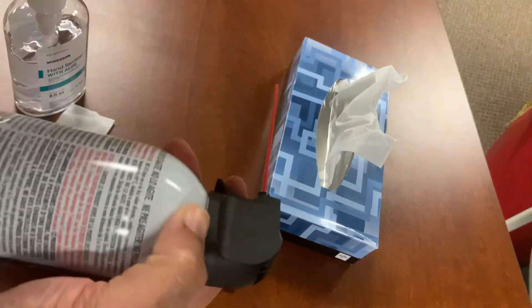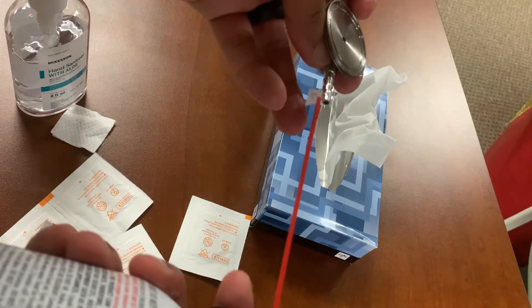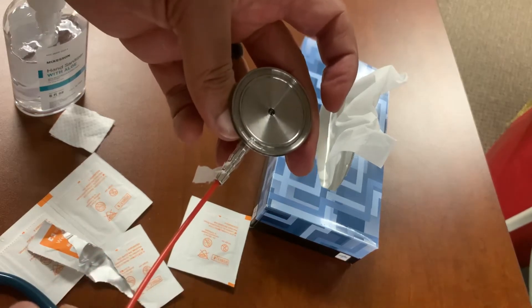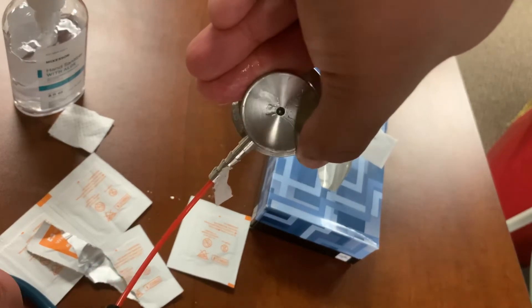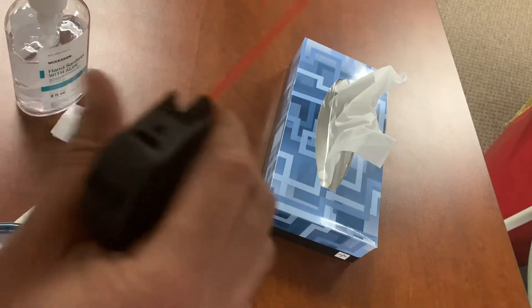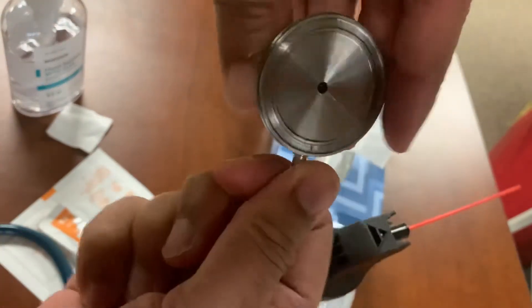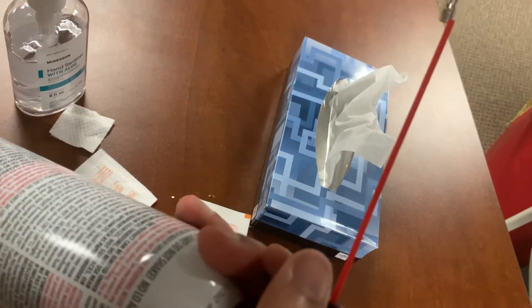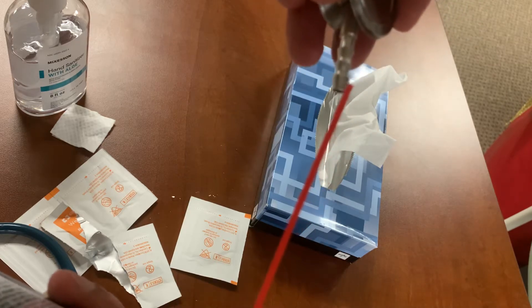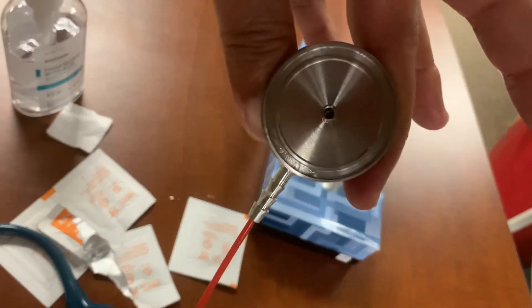That's where this comes in. You can easily stick the power duster in the hole here and just spray. All the excess crap will come out — if there's any dirt hiding on the inside, it comes out. Turn it again to show the hole on the diaphragm side, stick it in the hole again, and look at all that excess stuff coming out. Nice, huh?